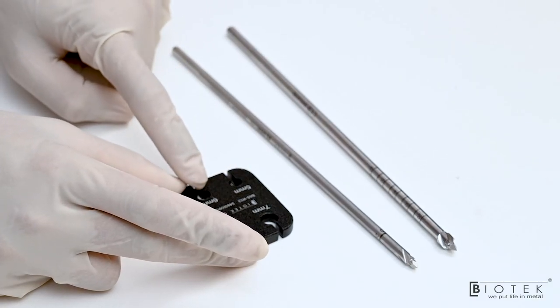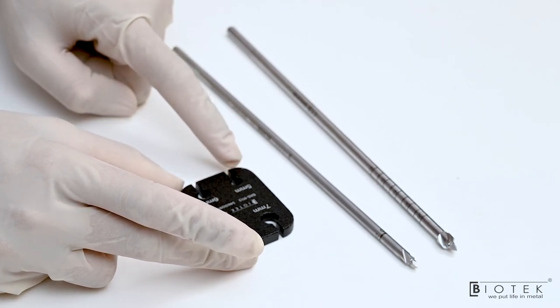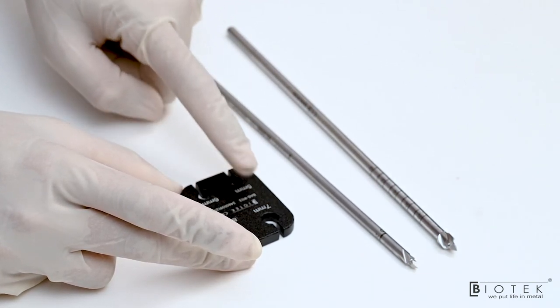This is the measurement device for the tendon diameter which has 5, 6, 7, and 8 mm slots.